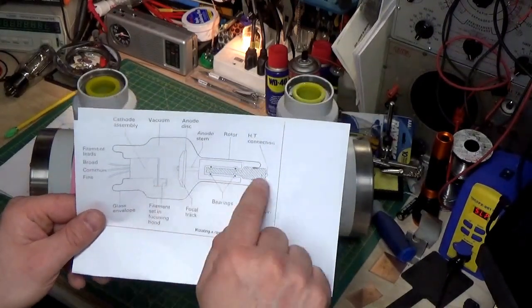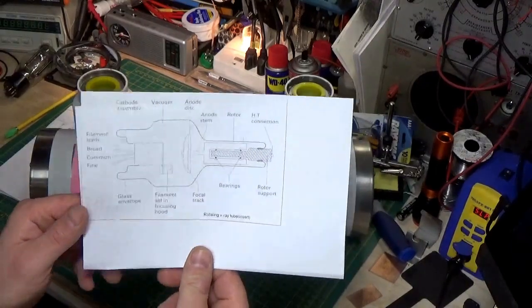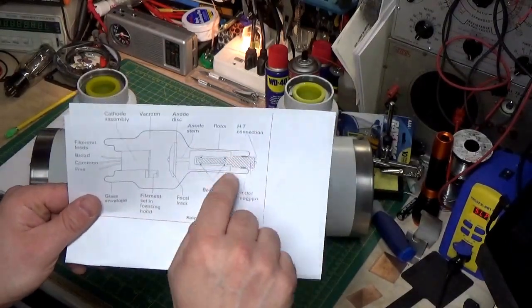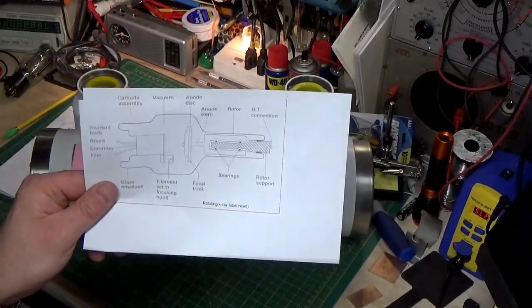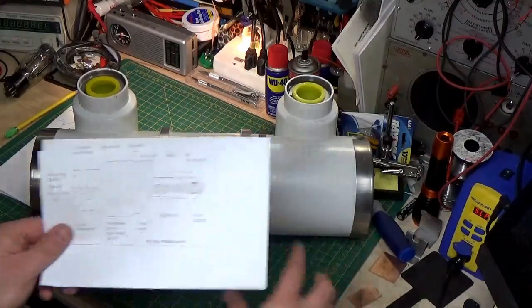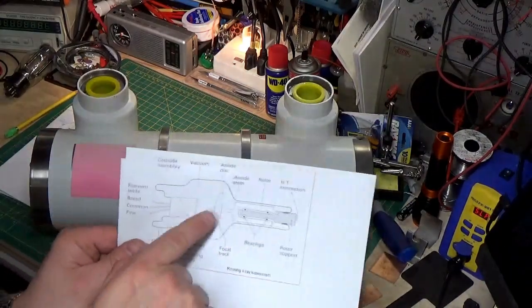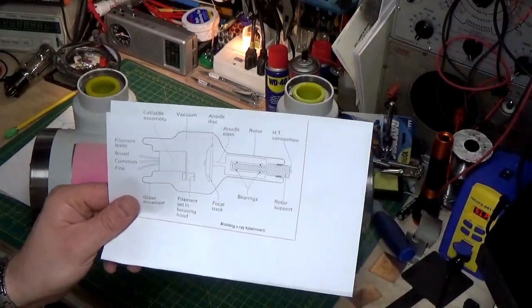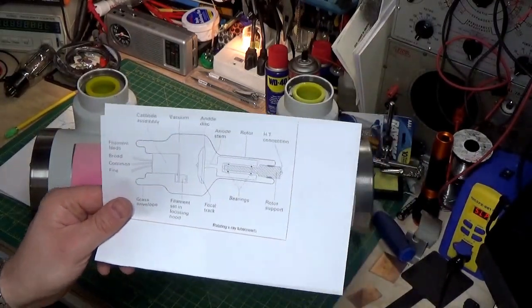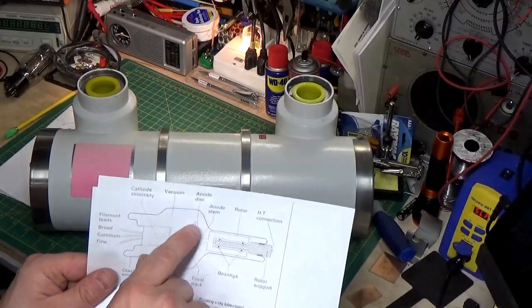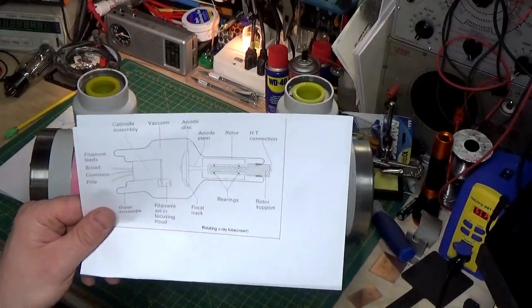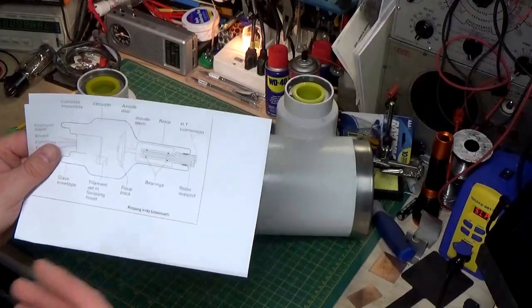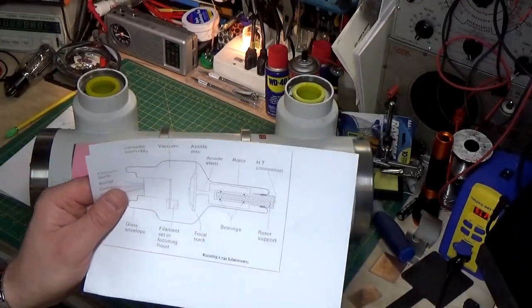So, you really can't produce any high energy radiation when you have a stationary anode. So, what we're doing here is, this is a motor, much like a squirrel cage motor, like a fan motor. And it's inside the glass envelope of the tube. And inductively, we put a stator coil around it. So, inside here is a stator coil, and this stem is inside that stator coil. And we rotate this disc. We spin it very fast, anywhere from 3500 to 10,000 RPMs. And what it does is, it spreads that heat across this whole great big heavy piece of metal. And therefore, we don't overheat our target.